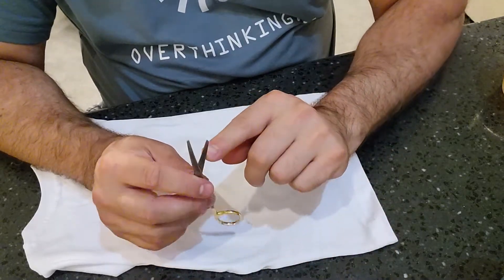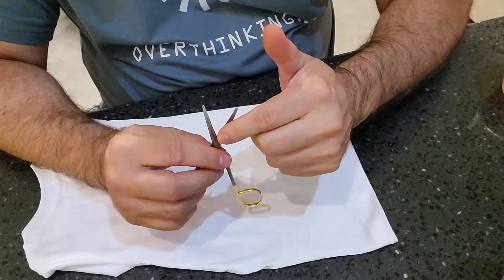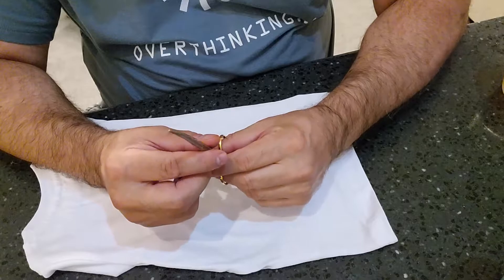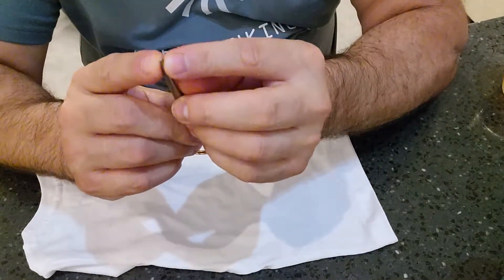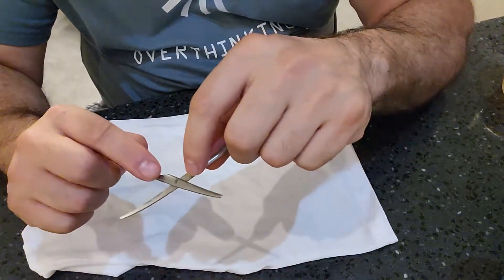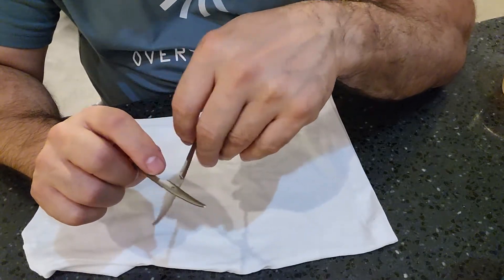The working area of the scissor is the jaw. All along the jaw you want to make sure there's no bio burden, no nicks or cracks, and no bending of the teeth. When closing the scissors, you want to make sure the points actually meet or overlap. For the box lock, you want to open it up to make sure there's no debris, bio burden, divots, pitting, rusting, or anything hiding in the nooks and crannies.